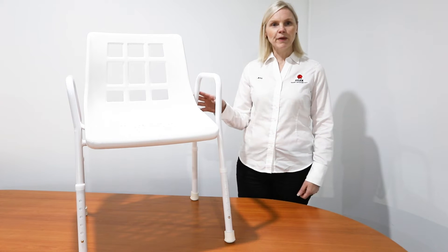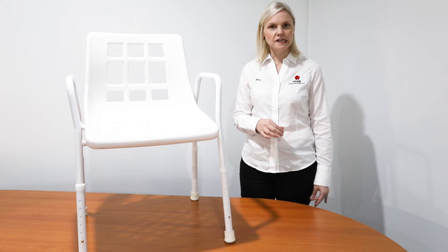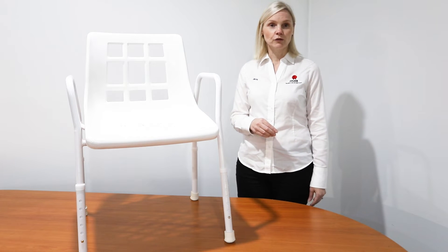These are ideal for when people require the stability and safety offered by sitting down in the shower or sitting in the bathroom after a shower.